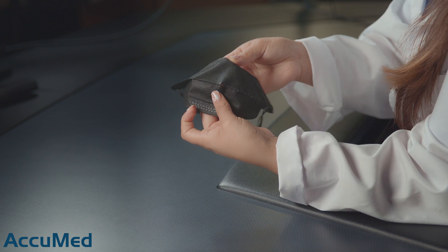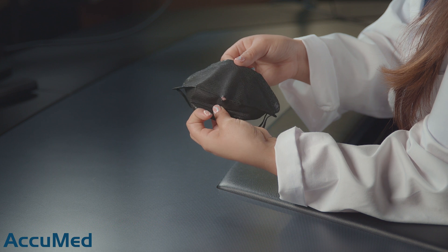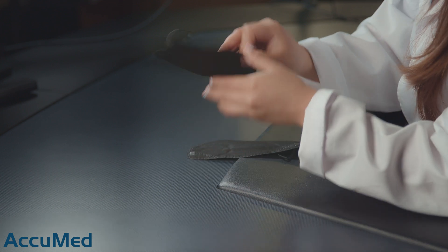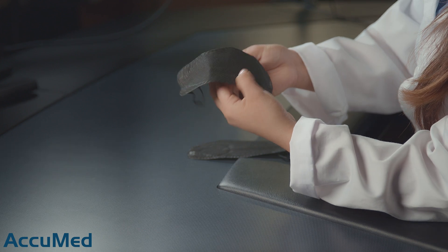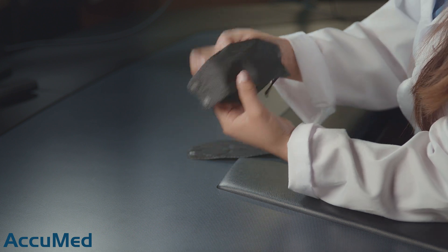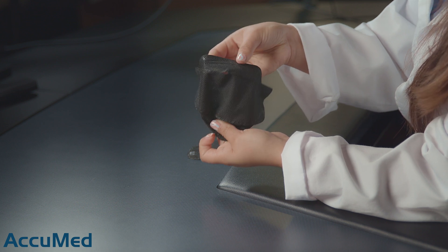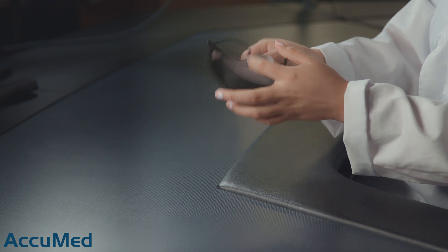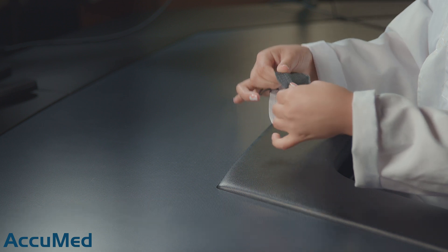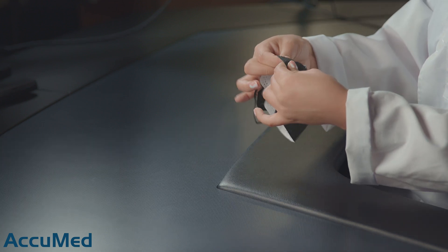This one seems to have a hole right here. Let's go ahead and take a look at another one. This is how they're supposed to look, and this is how it looks on this side. They're not the best quality. Let's take a look at the nose wire — standard nose wire, a little flimsy.